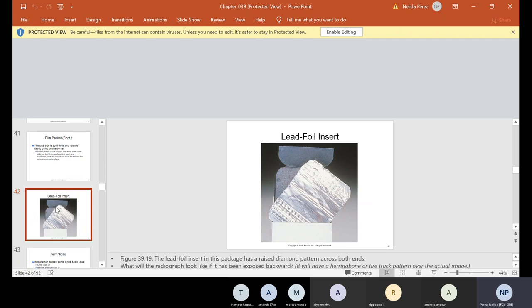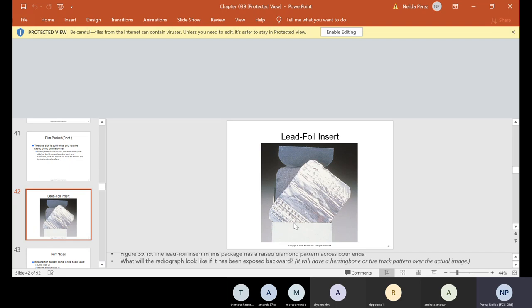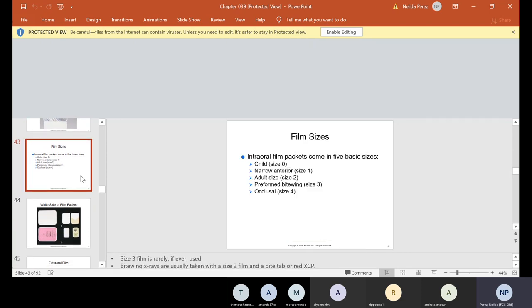If you put the film wrong on the XCP Rinn tab, you can see on this lead foil there's a herringbone pattern — also called the tire track pattern. If you take the x-ray backwards and process it, when the film comes out it will have lines from the lead foil, letting the doctor know you did not place the film in the patient's mouth correctly. That's why I always say: when you're looking through the ring, you should always see the white of the film. If you see the color side, you put the film backwards.